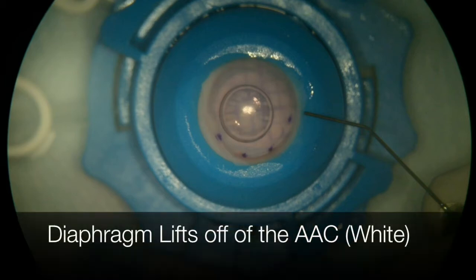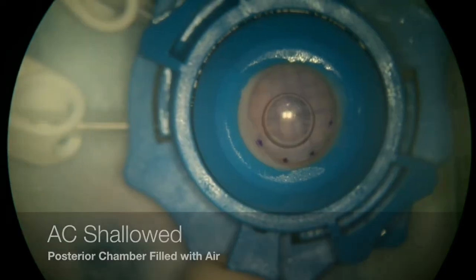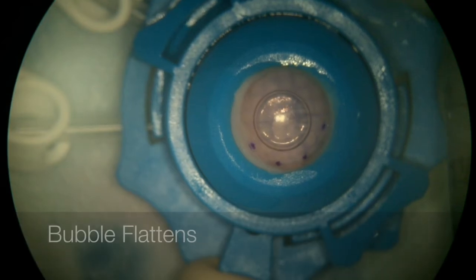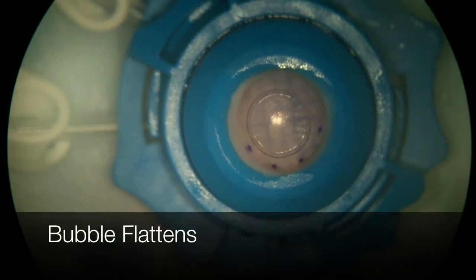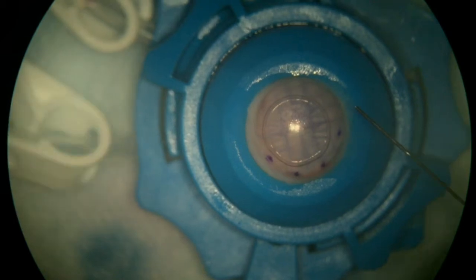The bubble in turn also becomes larger because it's pressed up against the cornea in a shallower anterior chamber. Injecting air into the artificial anterior chamber increases the pressure and volume of the posterior segment, which pushes the latex diaphragm forward and further shallows the anterior chamber. This makes the bubble in the anterior chamber appear to get larger.